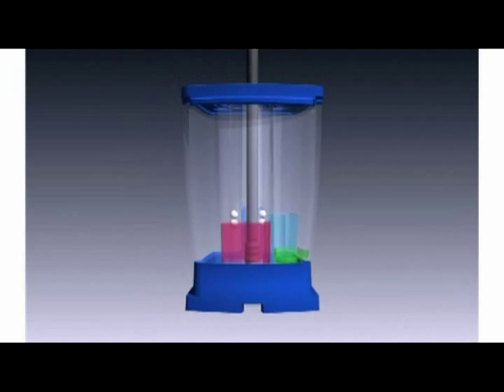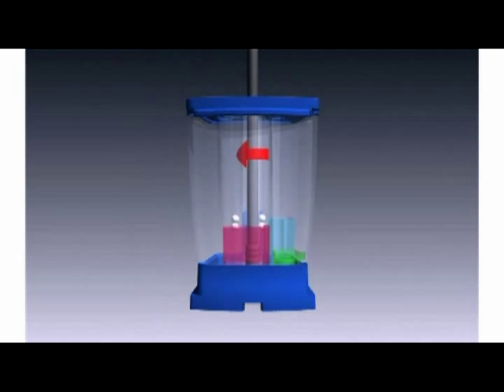The valve body again rotates into position three. Then it draws the first reagent into the central tube and through the active area. The piston then rotates to position four, drawing a second reagent through the active area.